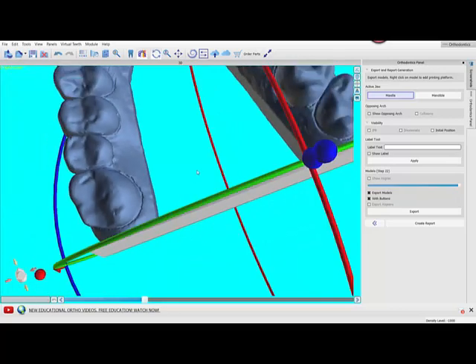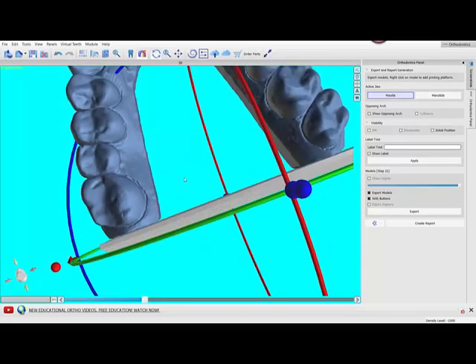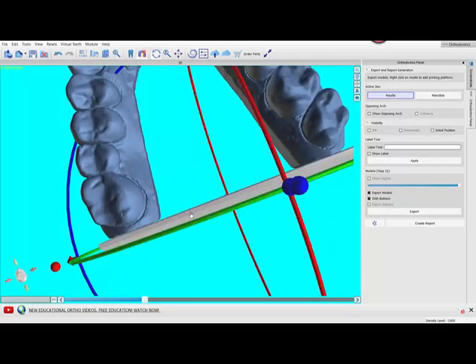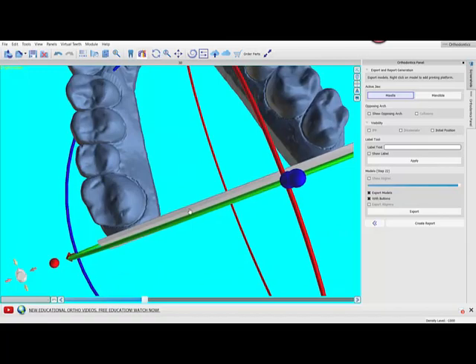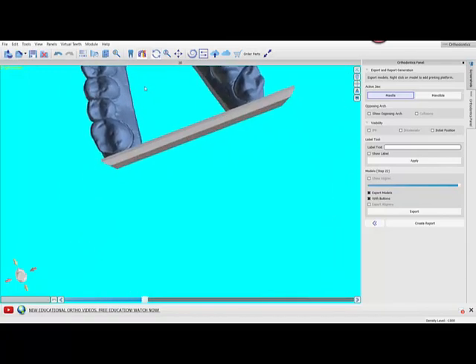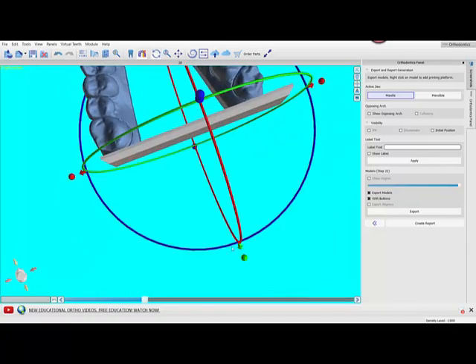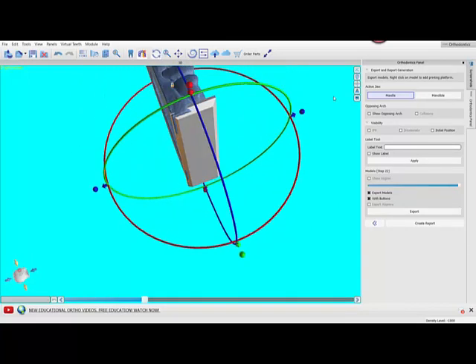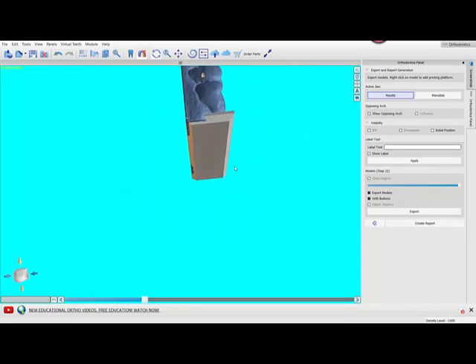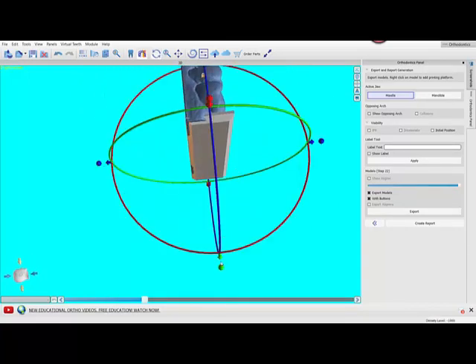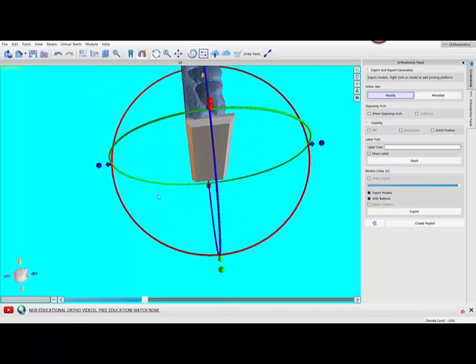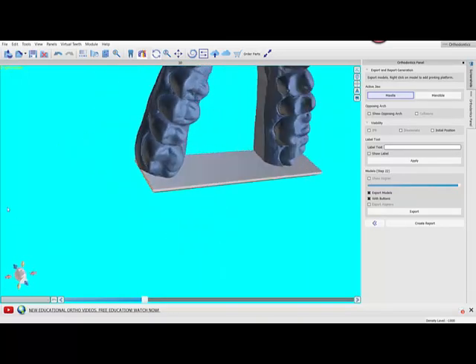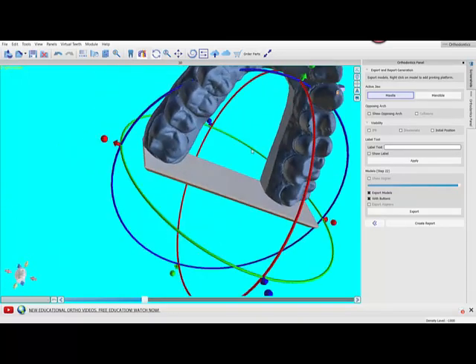The first thing we need to do as soon as we add this platform is embed the heels. You can just grab a hold of it and slide it up, or you can use the arrows back and forth. The whole point is you're just trying to slide it forward and get it so the heels are fully embedded so there is no gap.